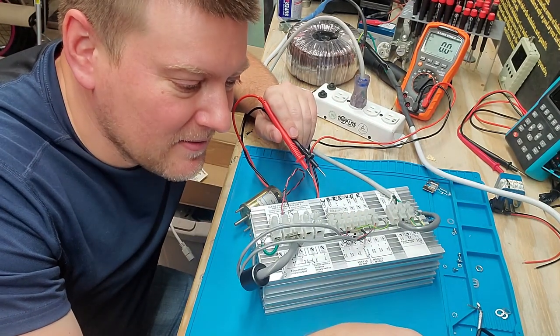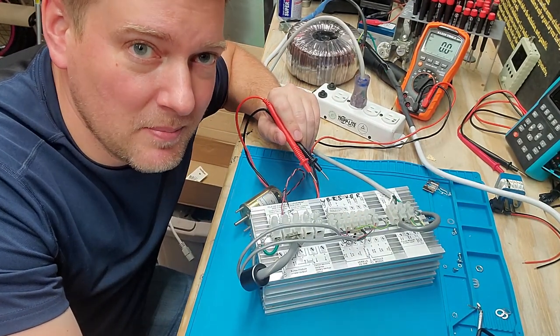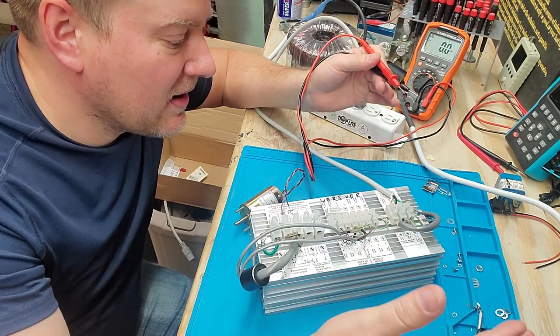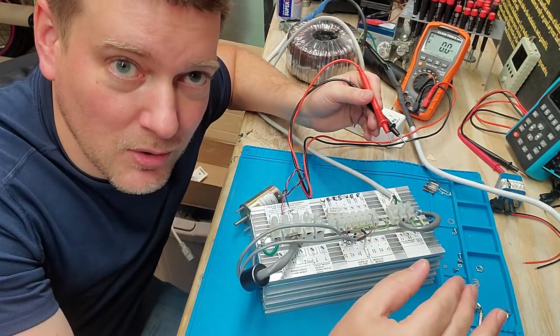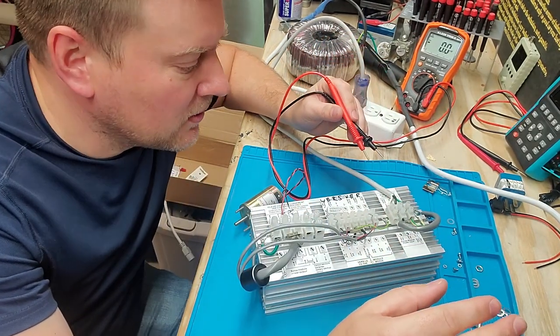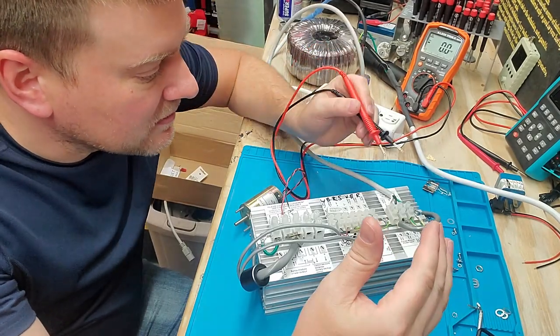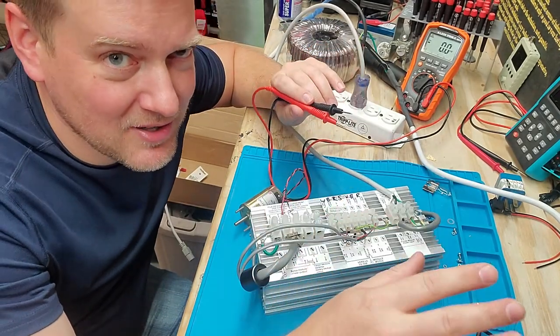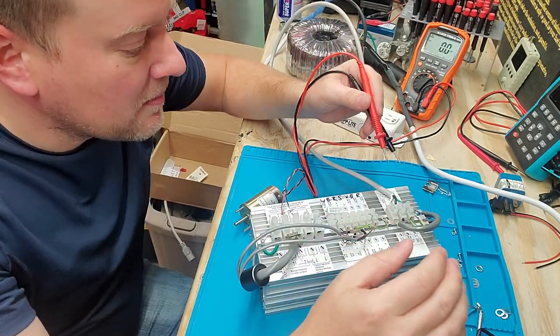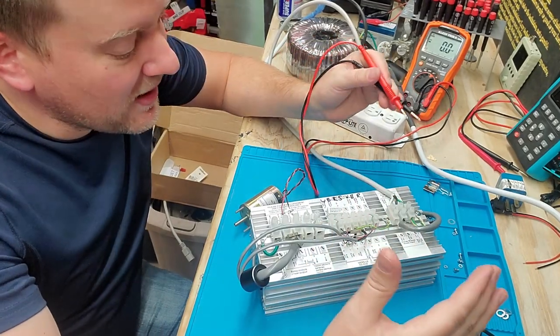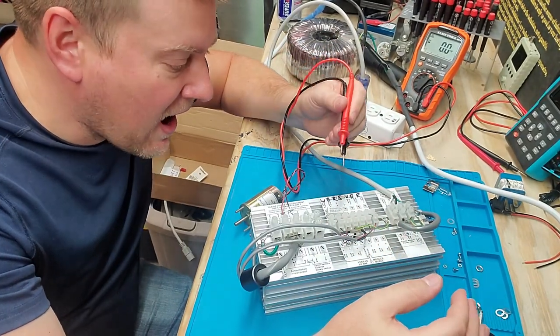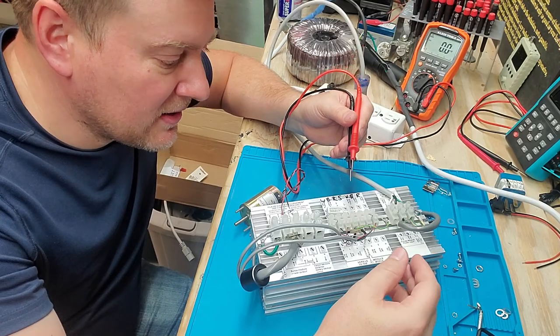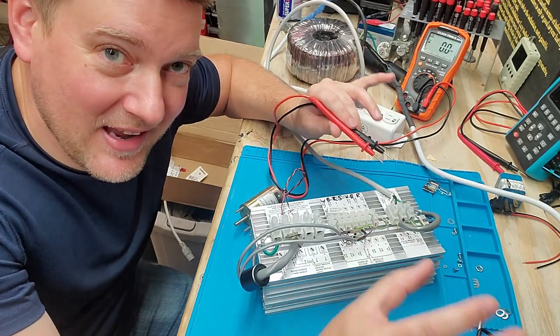And I knew that was a potential problem. So anyway, I had to kill the whole entire room which was horrible to do. Mind you there was no patient in the room at that time. But anyway, I learned my lesson and I would not use my multimeter to test the potentiometer the same way again.